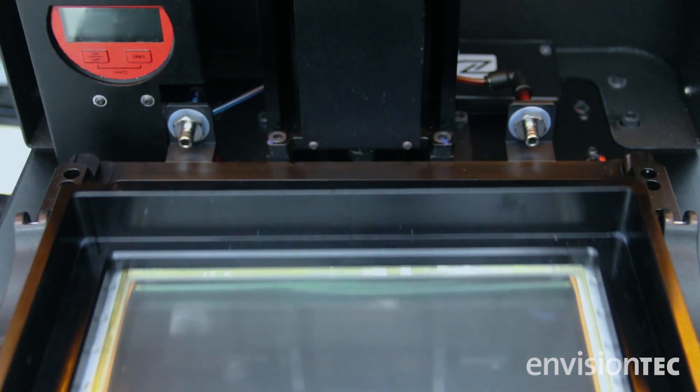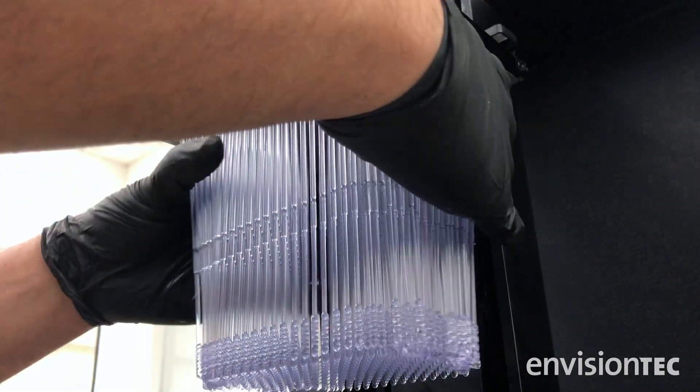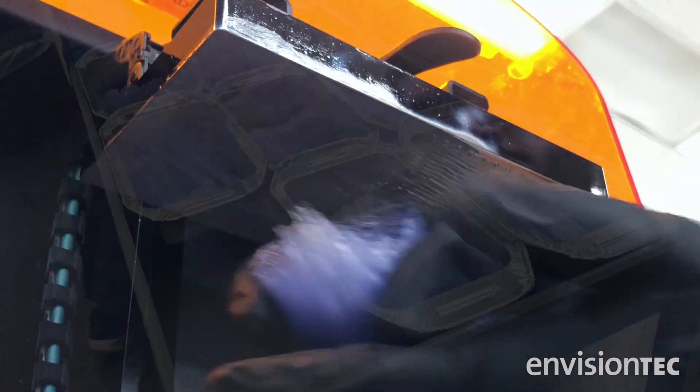The EnvisionOne CDLM technology is perfectly suited to print hundreds of swabs at a time.